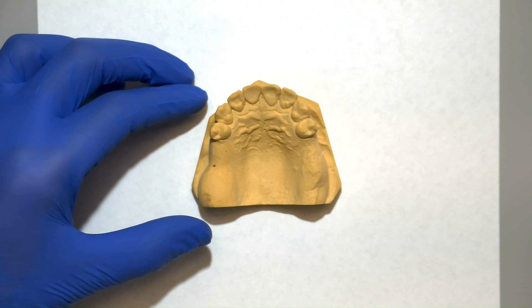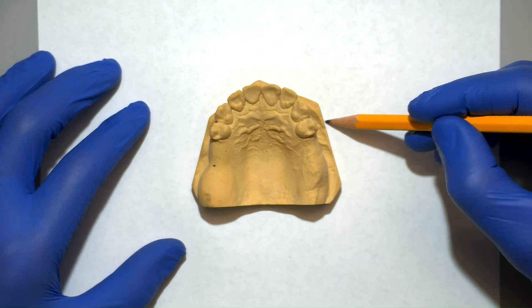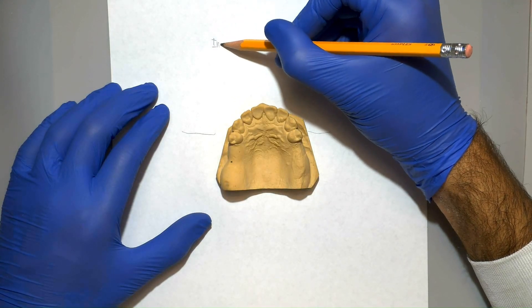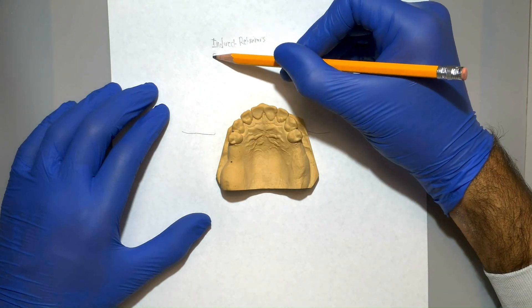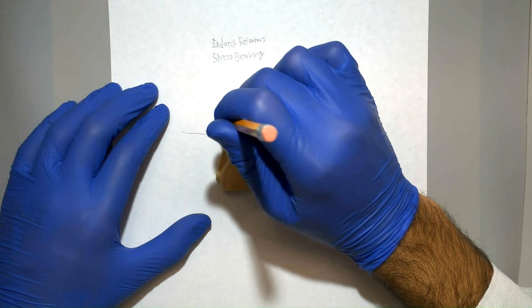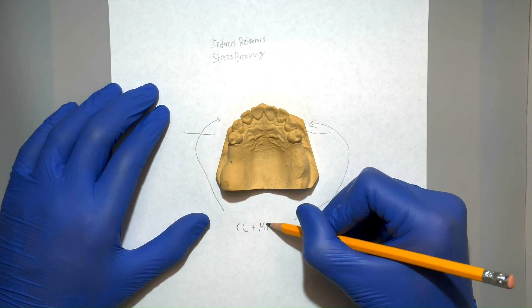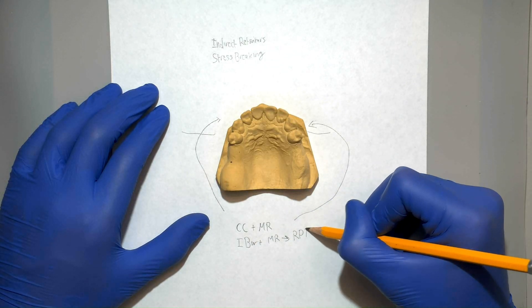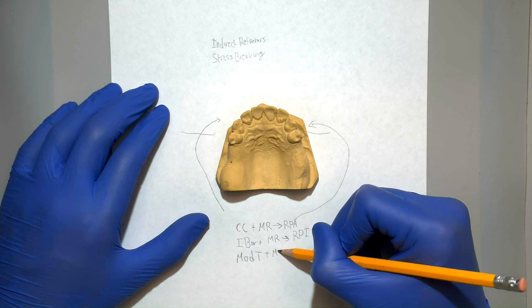Before we start, it's important to have a plan. This is a class 1 RPD, meaning we've got a fulcrum line right here. This means we've got to use indirect retainers, most likely on the two maxillary canines, and stress-breaking clasps. Stress-breaking clasps can be a cast circumferential clasp with a mesial rest or an I-bar with a mesial rest, called RPA and RPI respectively. Additionally, we can also use a modified T-clasp with a mesial rest.